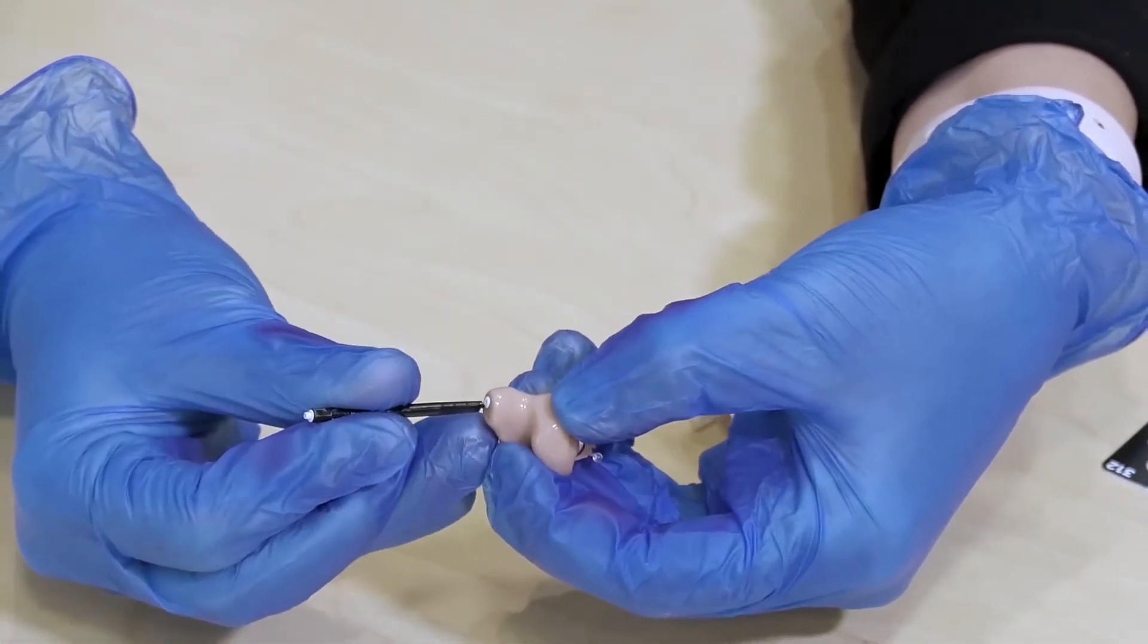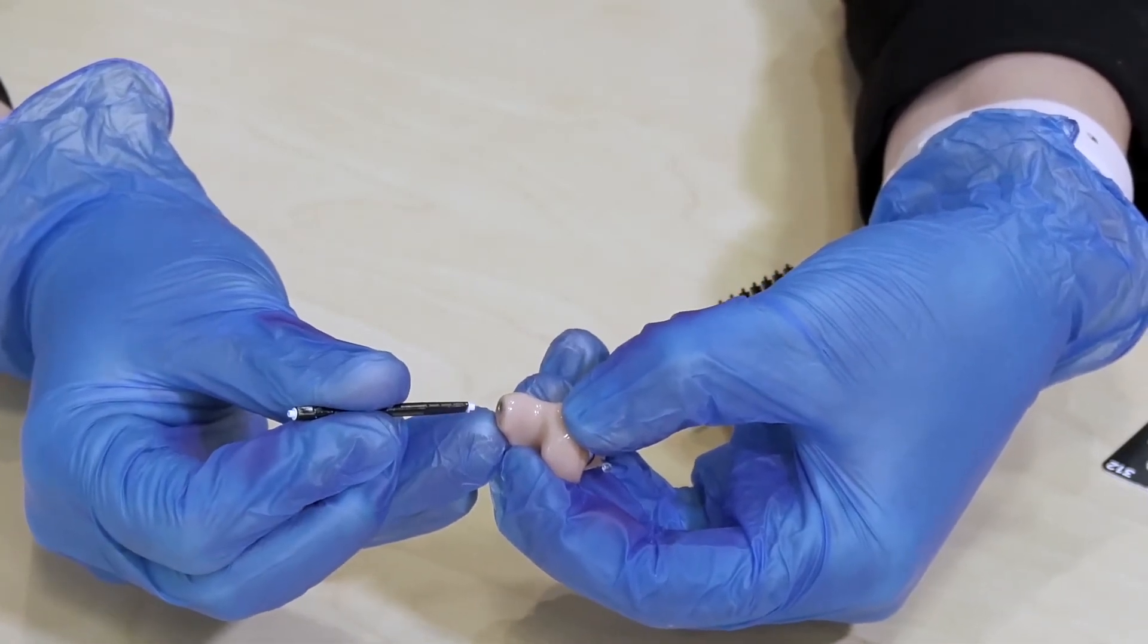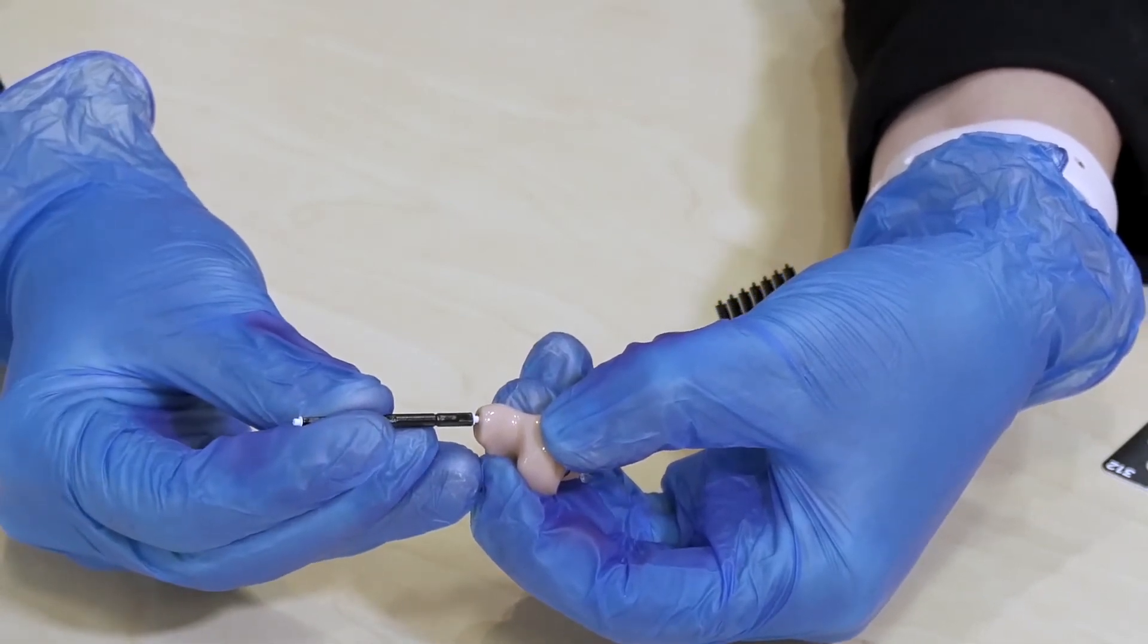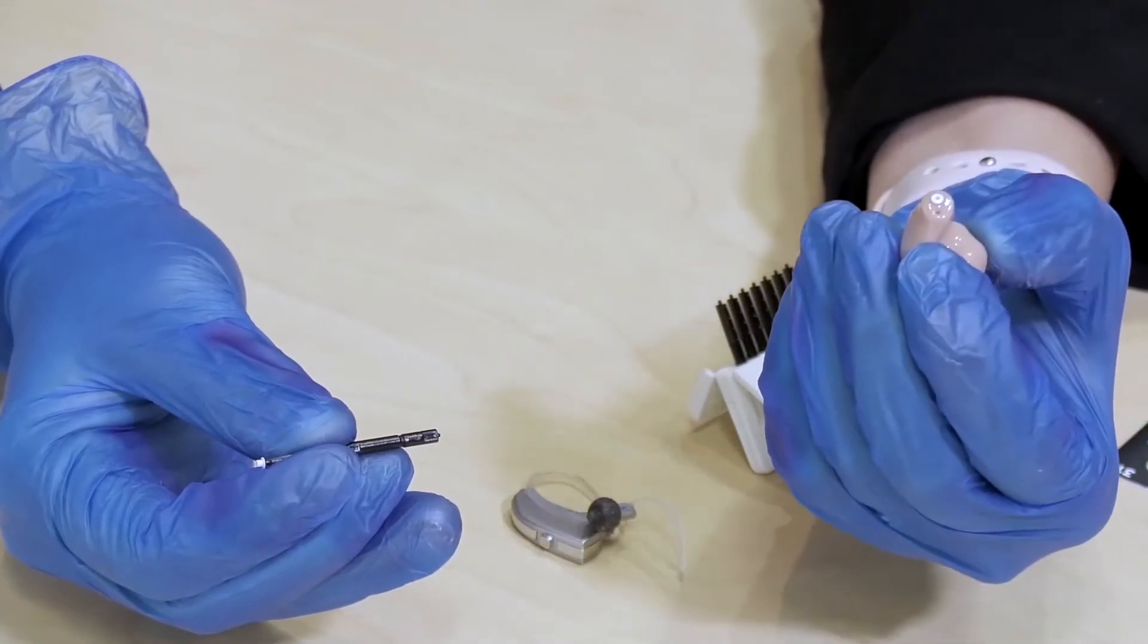Pop in in a straight line the little barb end which will pull out the old filter, turn it around in a straight line, pop in the new filter and then that should fix that problem.